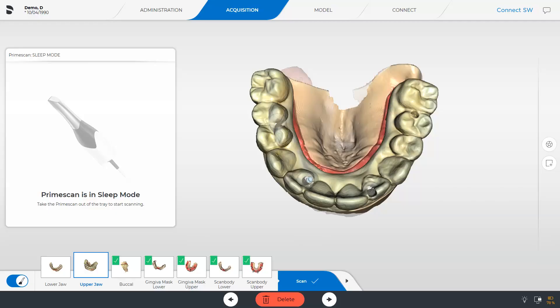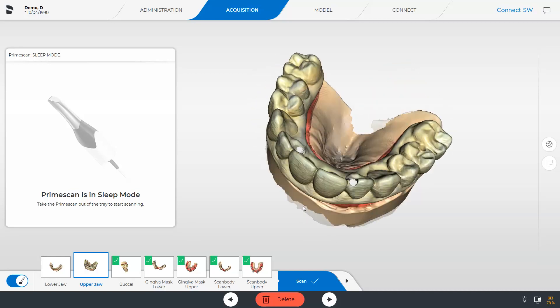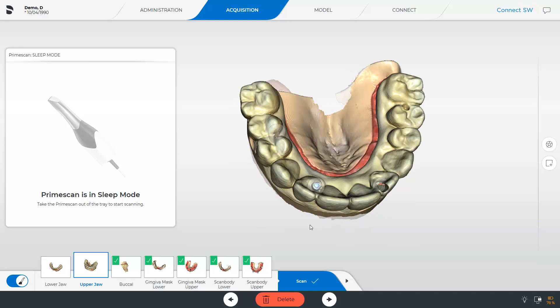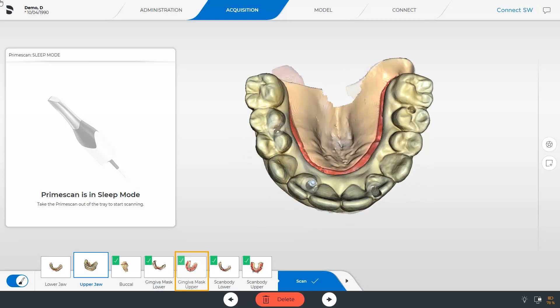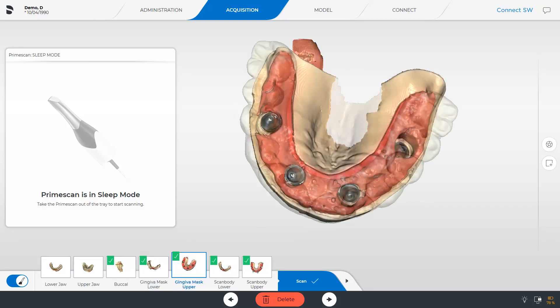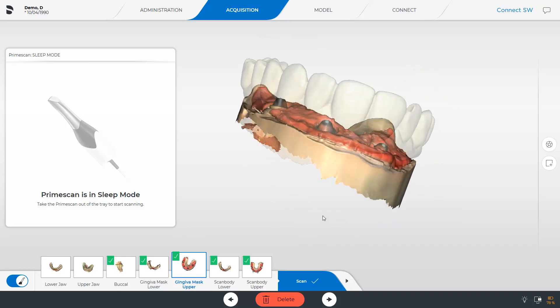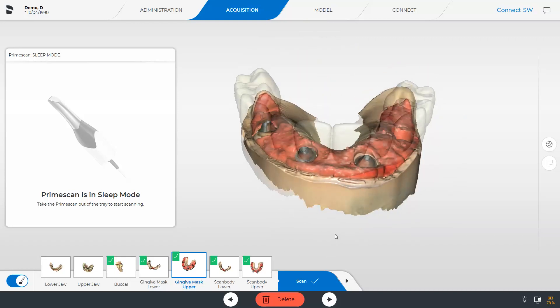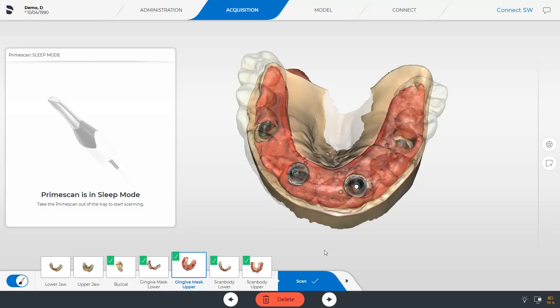Back in our example, we focus on the upper jaw and briefly click through the respective scanned image catalogs. The upper jaw has been scanned, including the tooth setup. We proceed with the Gingiva Mask upper image catalog, and see the already matched scan, which was indicated by the green checkmark, as well as the transparent inserted tooth setup. The same applies to the ScanBody upper image catalog.